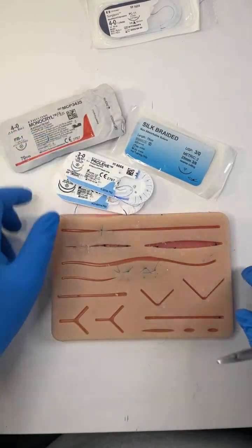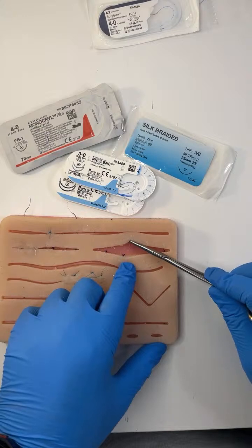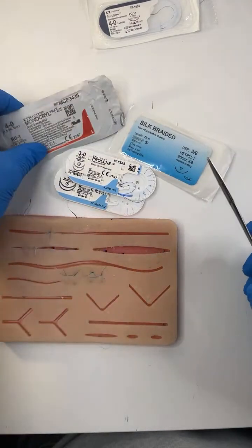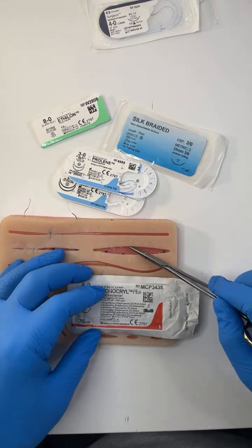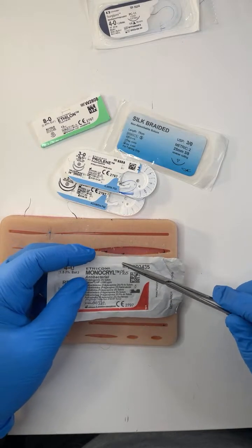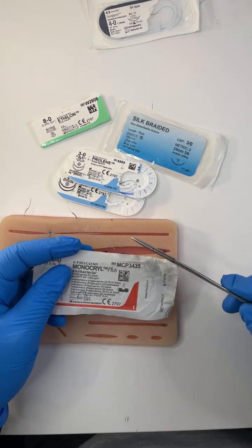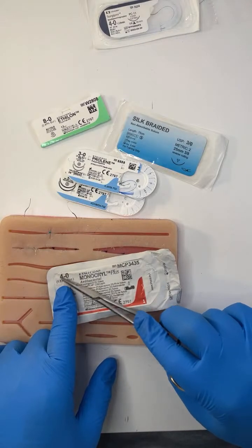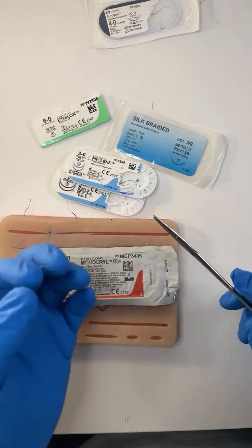So this is a complex wound. Why? Because it's under tension. If you've got a wound under tension, you need to use sutures that are going to help you reduce that tension. I could use a monofilament suture to close the dead space, but actually I would select a braided suture such as Vicryl, because the Vicryl braids will catch the dermis and grip it better. Whereas a monofilament is more likely to cut through like cheese wire. So a simple thing — same suture size, 4-0 or 3-0 — but just changing monofilament for braided will make your life easier.